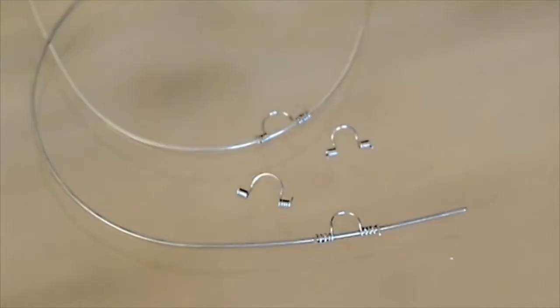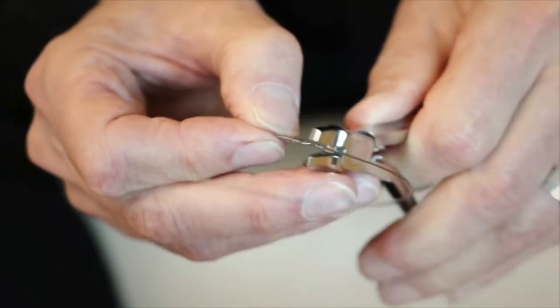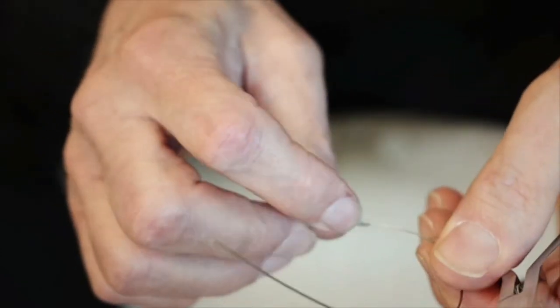The spring itself comes in two sizes — small and large — because maxillary incisors, mandibular incisors, and sometimes lateral incisors are not all the same size. The spring just slides over the wire in the position on that particular tooth that you want, and then with a special crimping plier — like an old 142 or ribbon arch plier which is serrated — you go ahead and crimp on either side, making sure that one coil is free to move, and then you wind up having torque placed on the tooth.